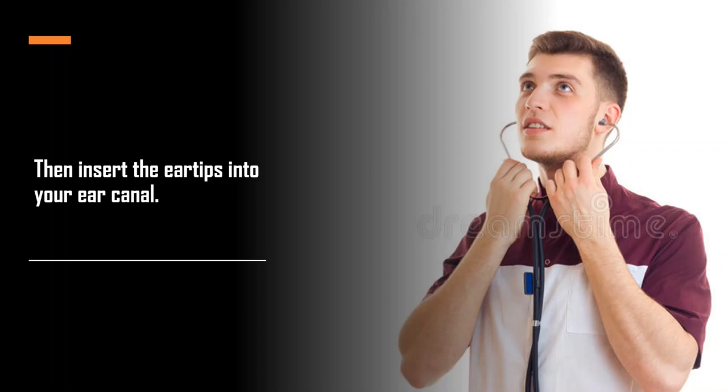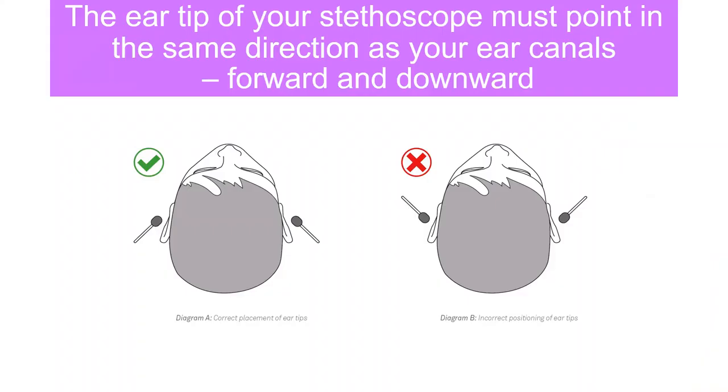This picture demonstrates the correct placement of the ear tips. The ear tips of the stethoscope must point in the same direction as your ear canals, which is forward and downward.